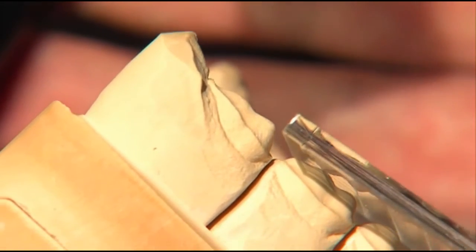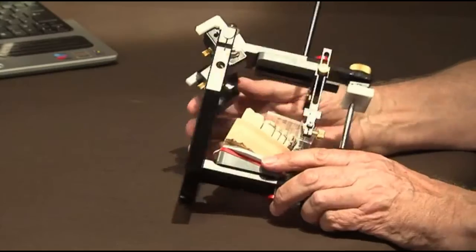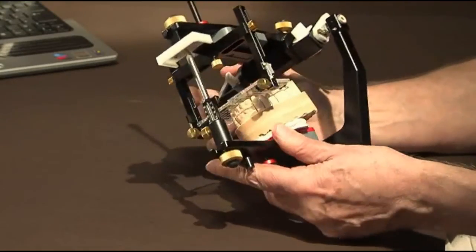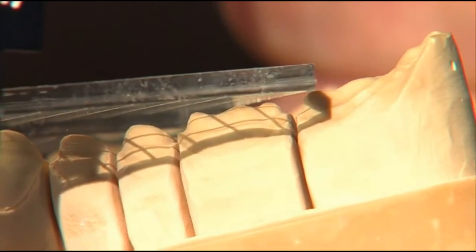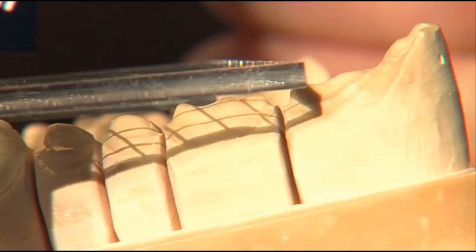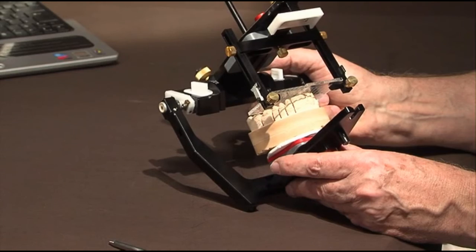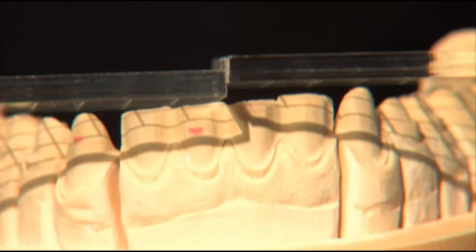First, on the right side, a distinct space in order to be able to wax the distal cusp. On the other side, again a careful check to make sure that there's enough space to form a cusp. The occlusal plane in the anterior area is distinctly asymmetrical. This requires that the right front teeth are somewhat shorter than the left front teeth. This will have to be corrected later aesthetically.